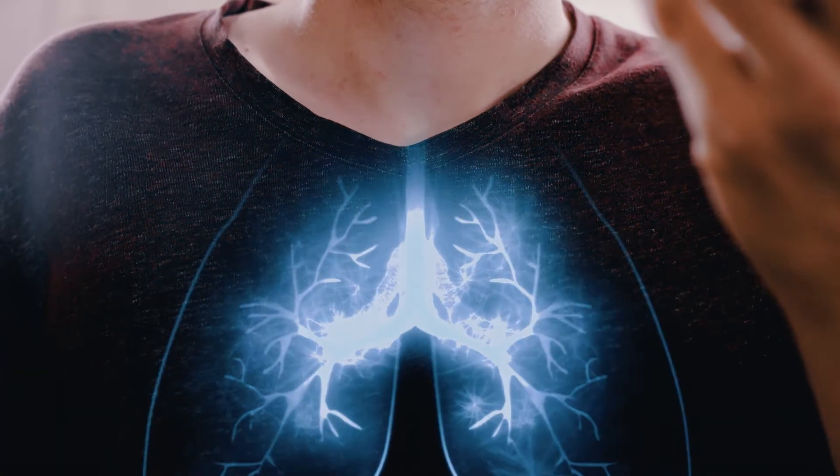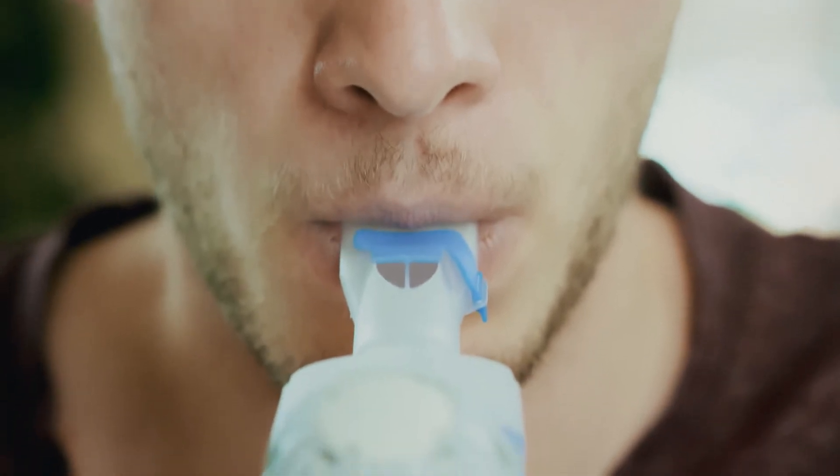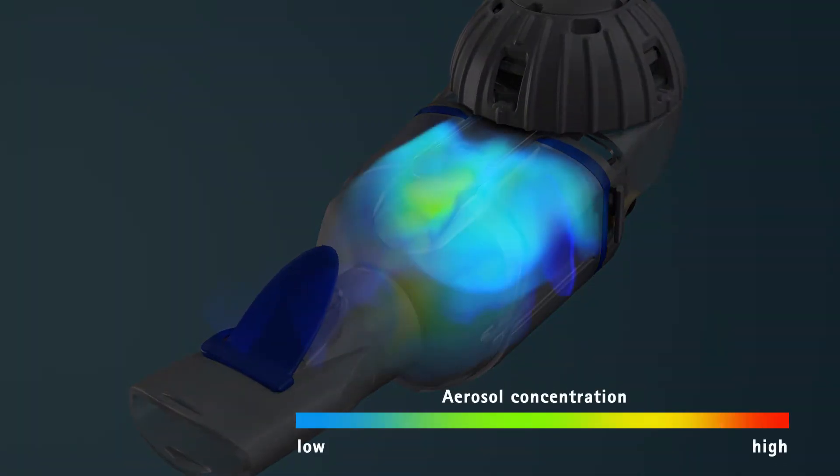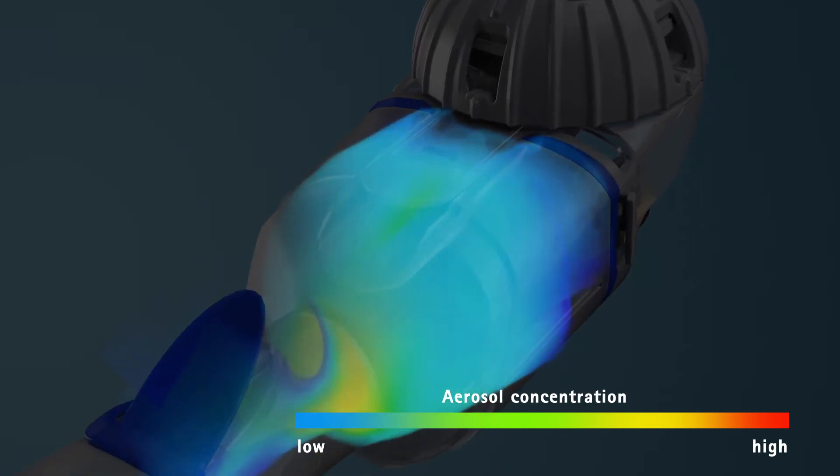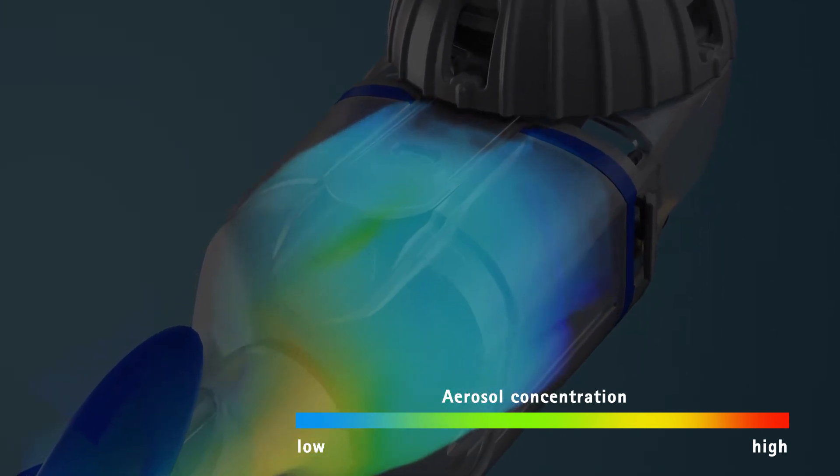And right after that, during the exhalation phase, the patient's exhaled air escapes through the expiratory valve on the mouthpiece, while the aerosol is stored in the aerosol chamber.